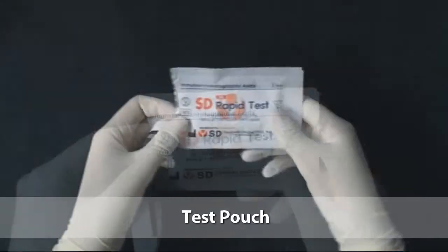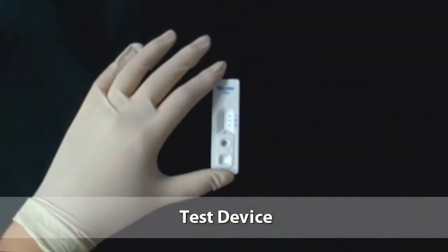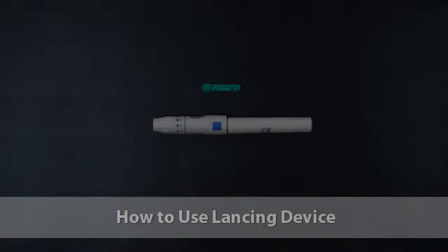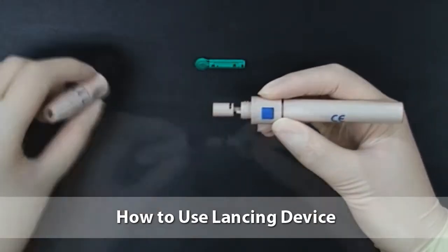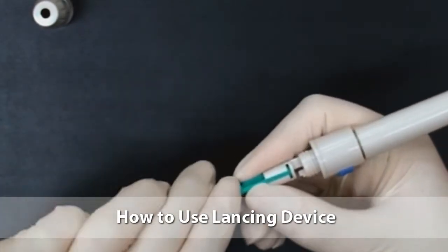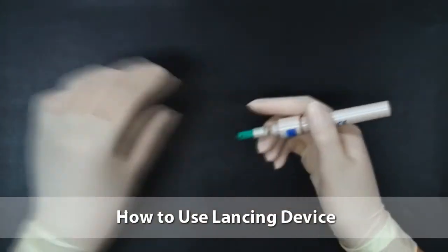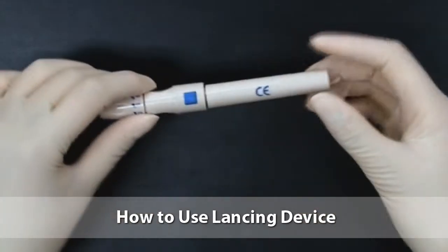Open the test pouch and set the test device. Write the patient's name on the test. If you have a lancing device, assemble the lancet with the lancing device. Unscrew the cap from the lancing device body. Insert the lancet into the lancing device holder and push down firmly until it is fully seated. Twist the lancet protective disc until it separates from the lancet, then screw the cap back onto the lancing device body.